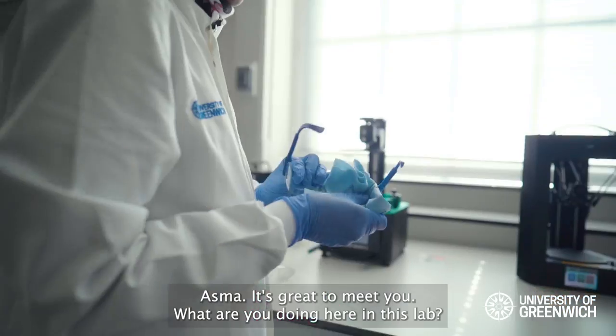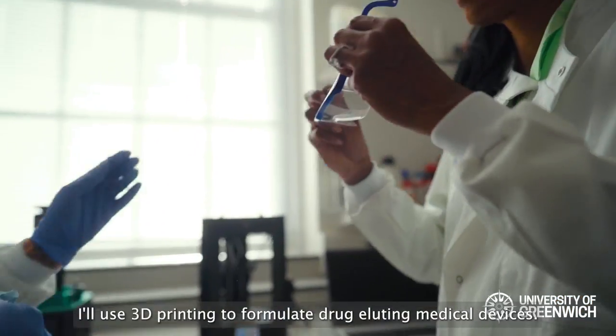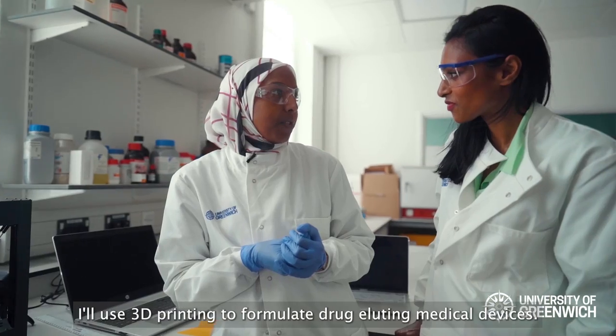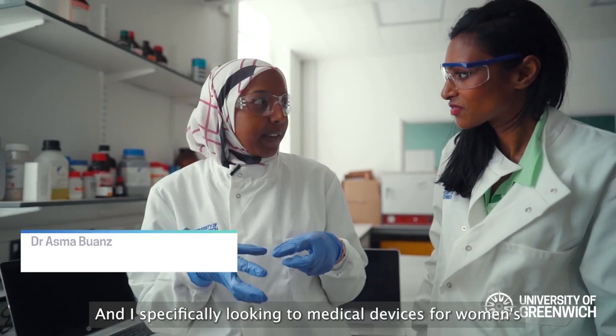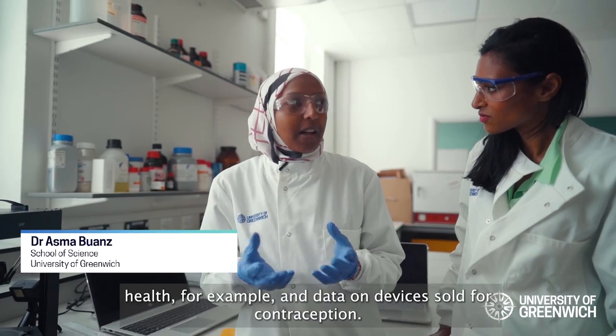Asma, it's great to meet you. What are you doing here in this lab? I use 3D printing to formulate drug-eluting medical devices, and I specifically look into medical devices for women's health.